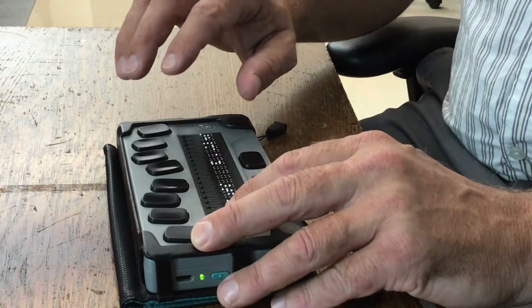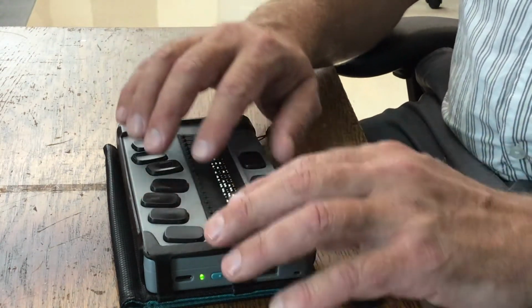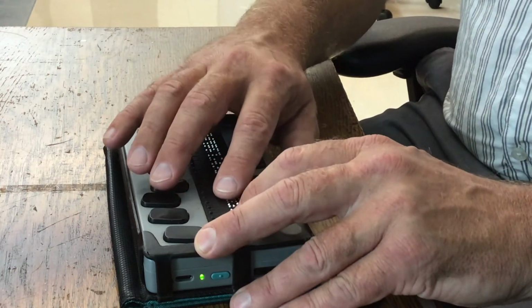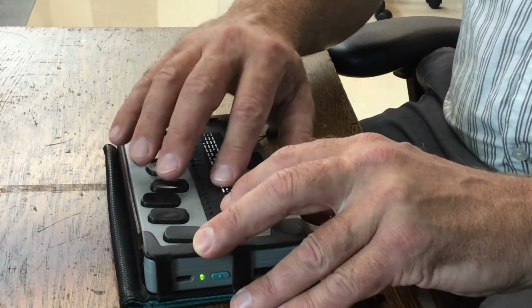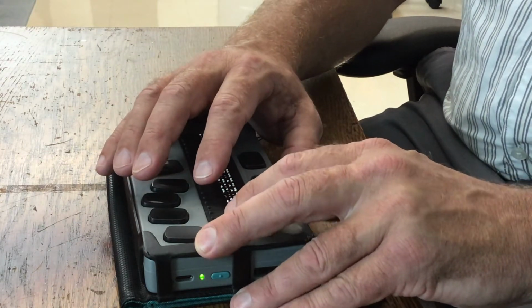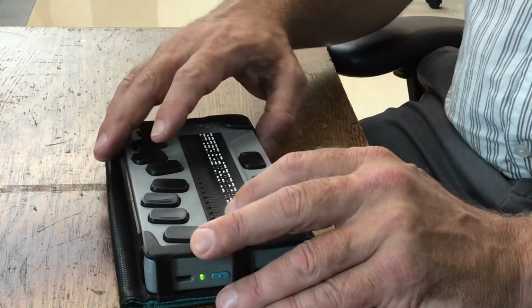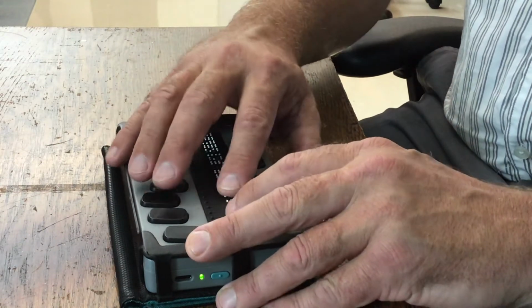I'm going to press Enter on storage, and I have a documents folder. So I'm going to press Enter on my documents folder, and then I'm going to press backspace with V, and it moved iPhone notes from the storage card over to the documents folder that's in storage, and storage is the internal hard drive on this.